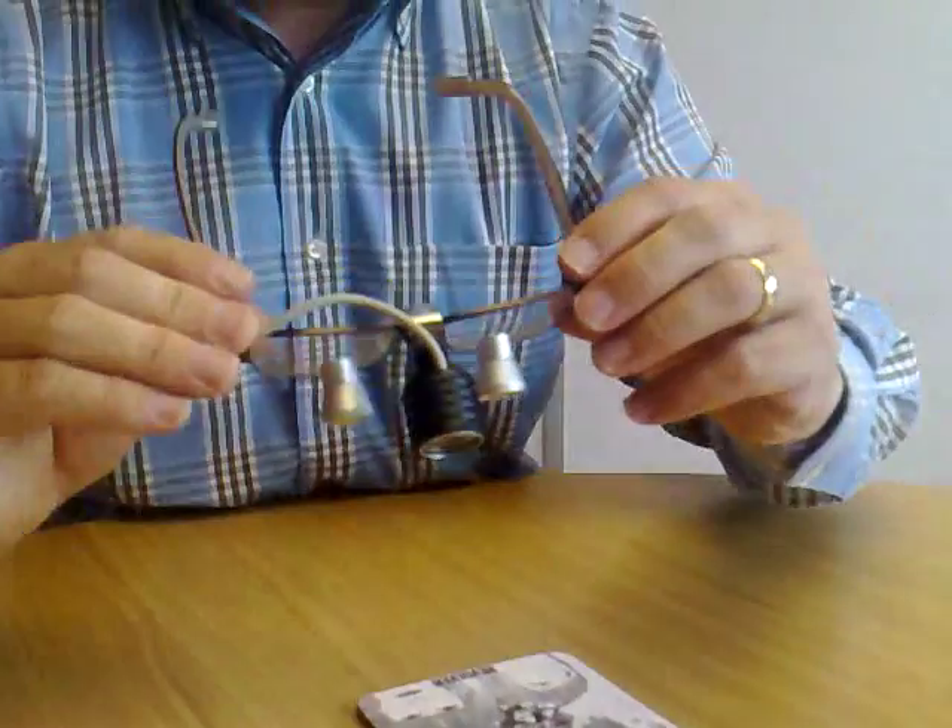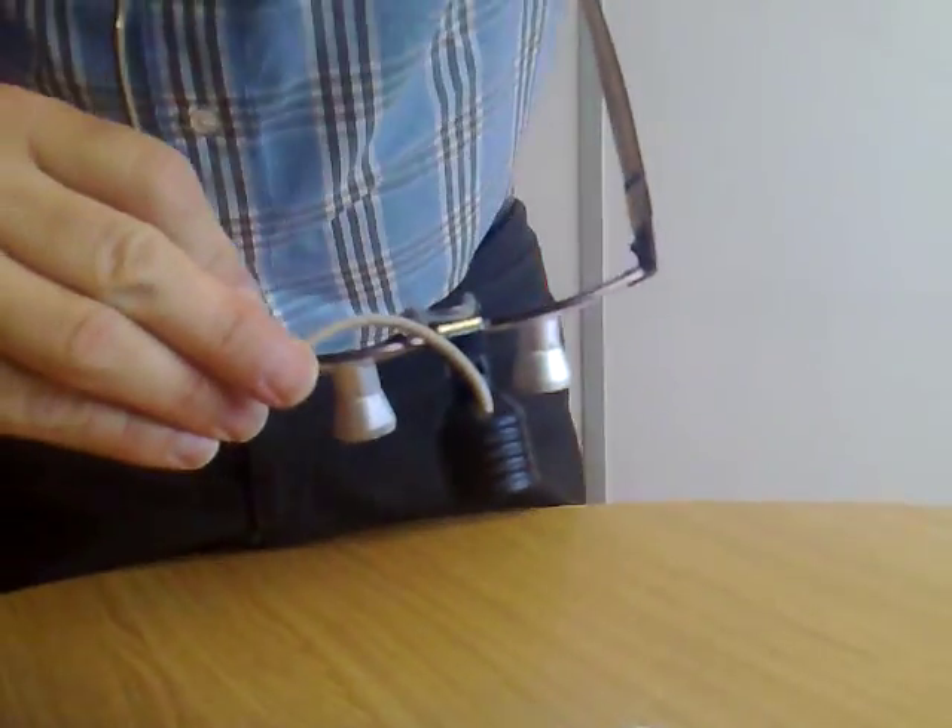What we're going to try and show you, and it's a little bit haphazard, is if I borrow the camera a minute, I'm going to take this over. Excuse me if it all goes a bit strange. If we look through, let's try and get the angle right. It's going to take a couple of seconds. Basically what you've got is — I don't know if you can see — but through there, we can see that John Lennon comes that little bit closer on the famous Revolver cover. And that's obviously where it's of use.